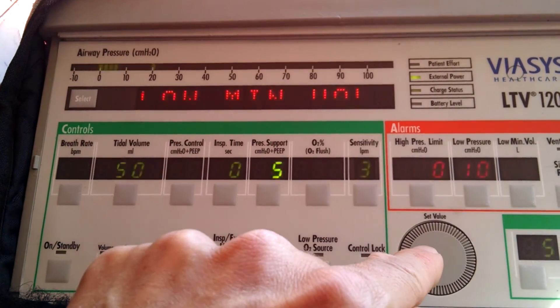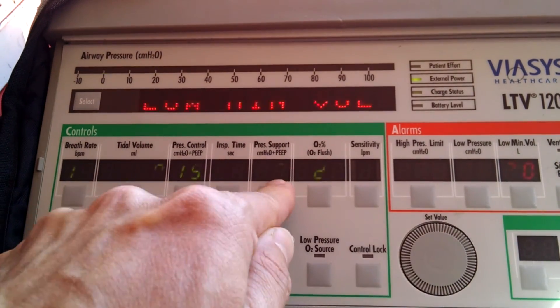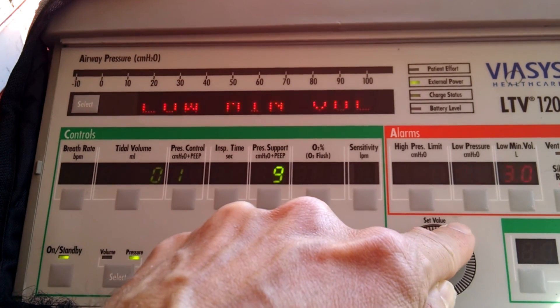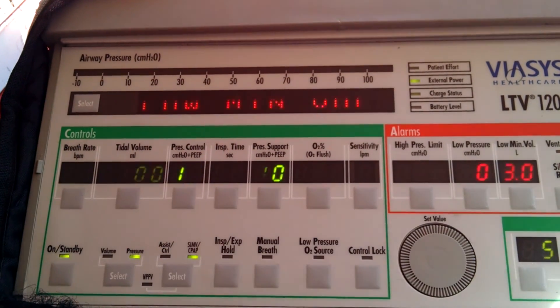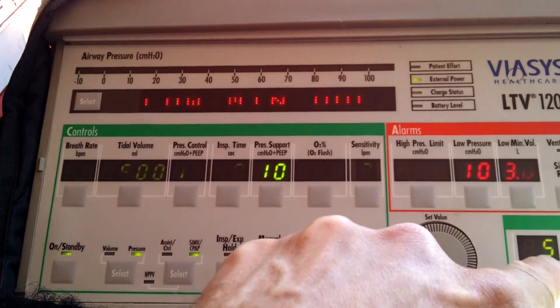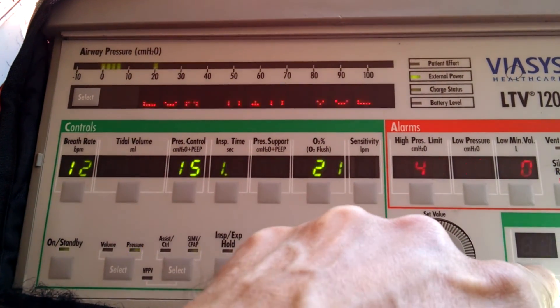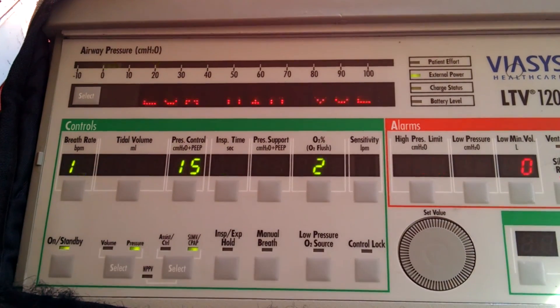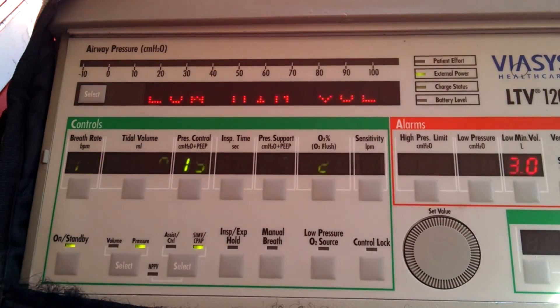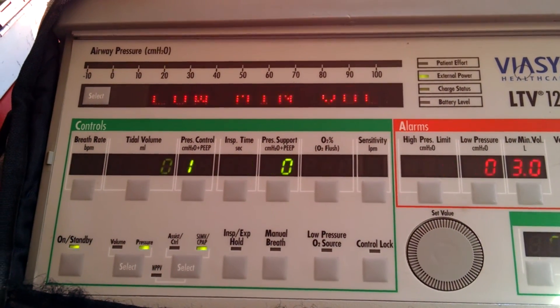Let's say we're going to set it to 15 over 5. We'll take the pressure support up to 10 in this case and accept that. Then we're going to come over to our PEEP, which is the same as the EPAP - it's already at 5, so we're going to accept that. You can always change your FiO2 if you want; in this case it's at 21%.